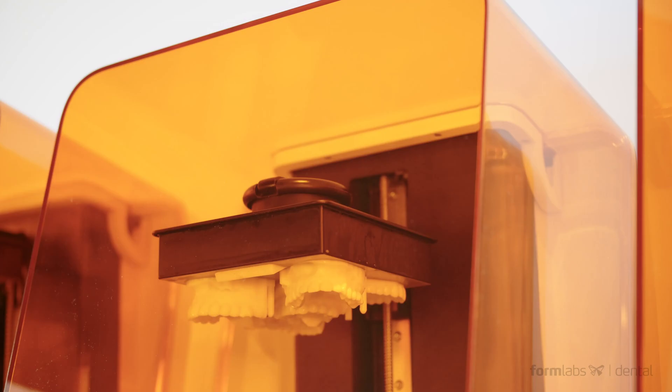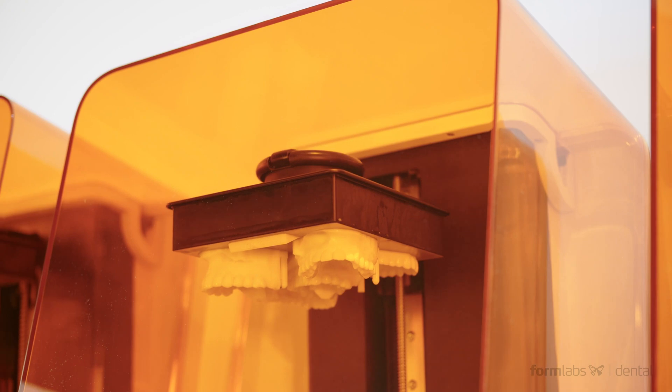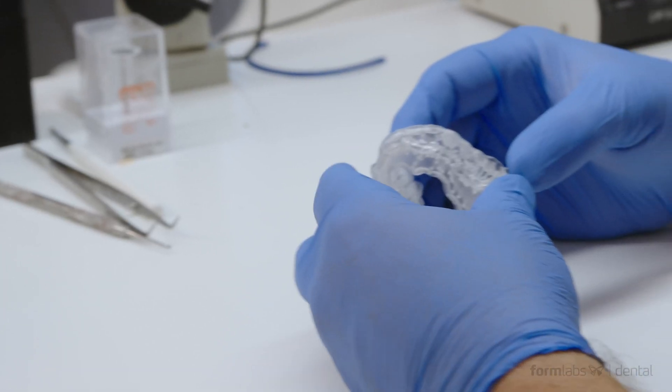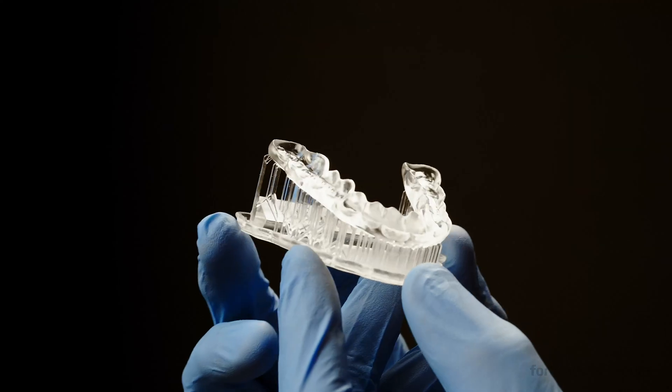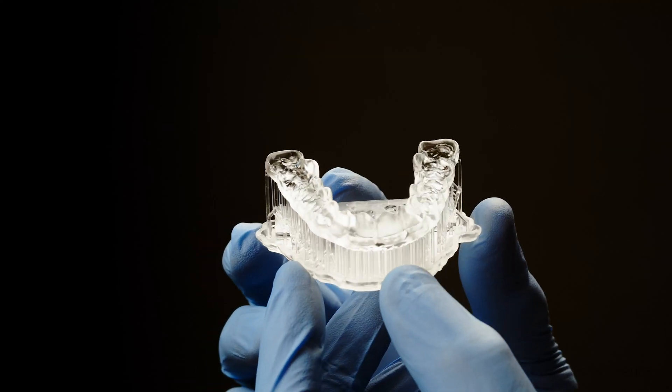As the leaders in digital fabrication for dental applications, the confidence dental professionals have in Formlabs printers is by now legendary. And we're dialing it up a notch by making the Form 3B our most reliable printer ever.